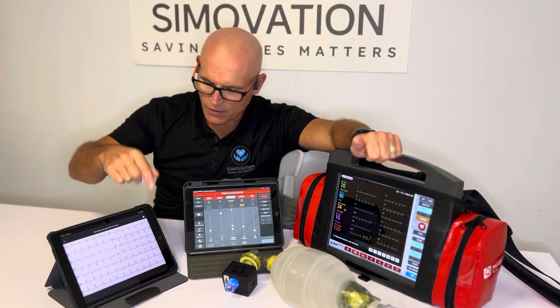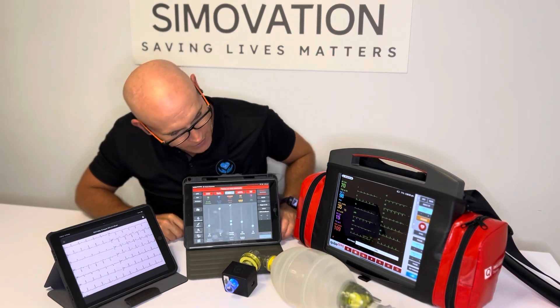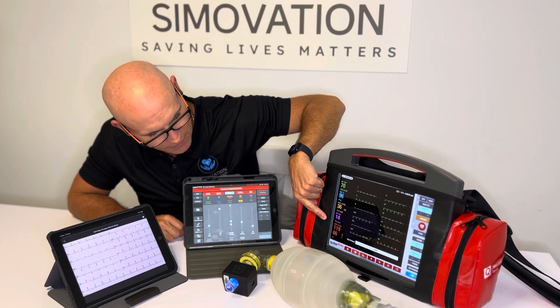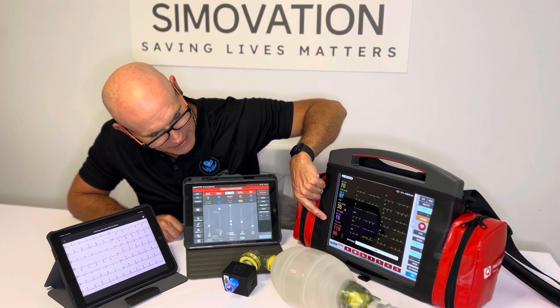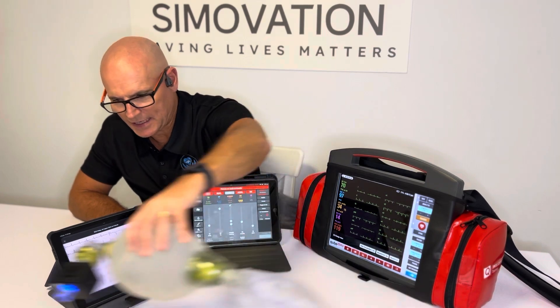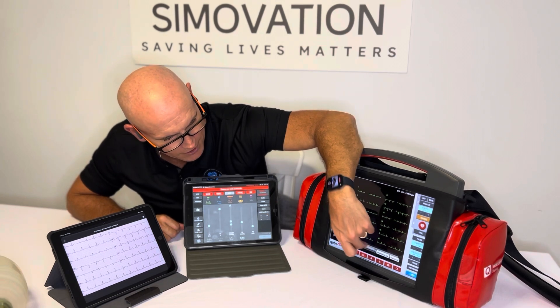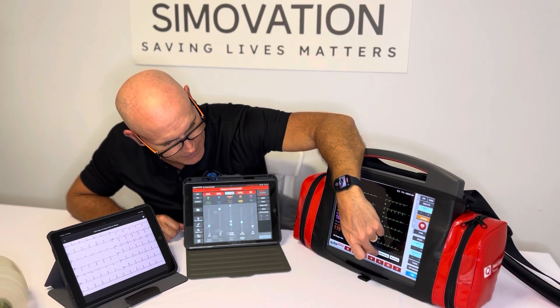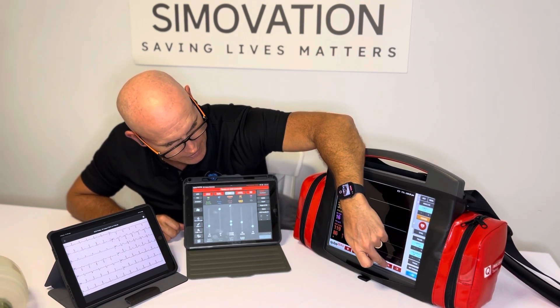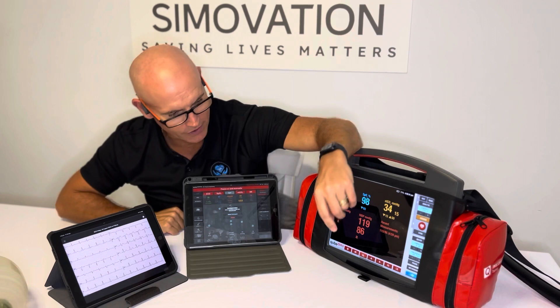Now I'll tap the blood pressure icon and it's just cycling the blood pressure. Whatever we set the BP to — which looks like it's set to 122 over 82 — it's coming up as 119 over 86, so it's reasonably close. Then we have our alarms. I'll activate this button which gives us access to different vital parameters — on the left, tap again for waveforms at the top. Tap home, go back, tap again for numerical view. You have the flexibility to change those on the fly very easily.